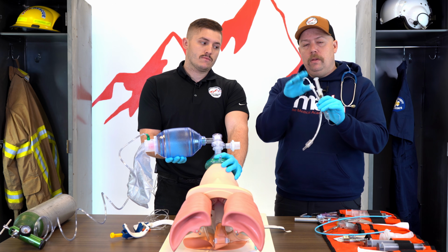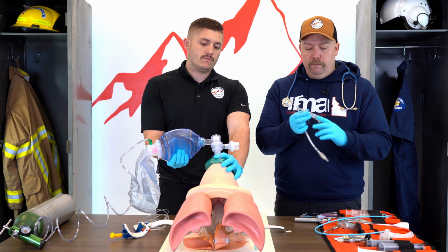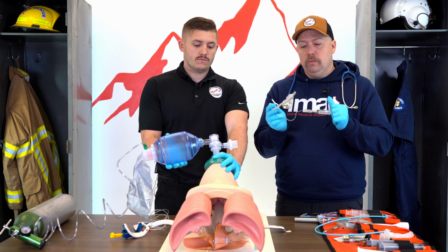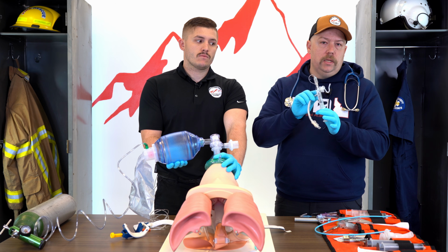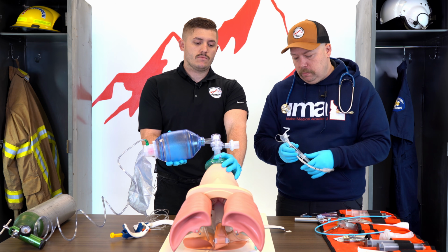Like Cody said, we're going to make sure that we have the stylet all placed before we go. We want to confirm that this little bulb didn't get punctured or anything. So before we do this, if you're setting things up, we just want to fill it and make sure that this will stay nice and secure. And that's usually about 10 cc's of air. So we need a 10 cc syringe here with no fluids or anything in it. It's just going to be air we're going to push in.